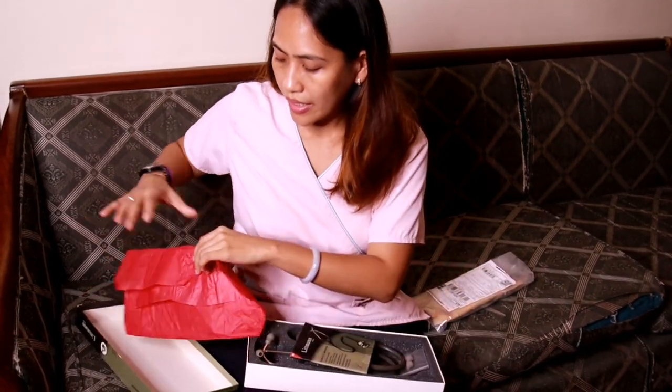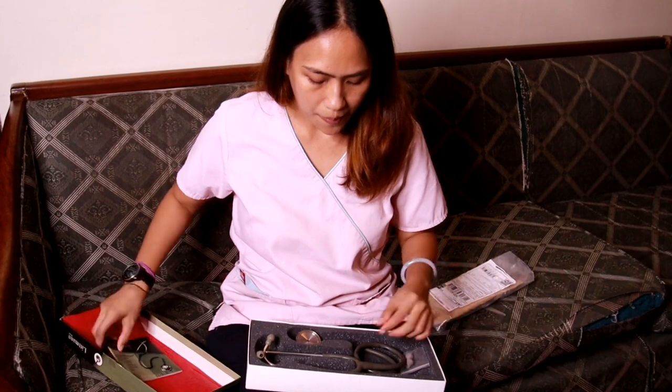This is different from the pediatric version because of course the pediatric one is smaller. I've had this stethoscope for over a decade now, and the wear and tear came from the ring, and then I lost the membrane, so I had to look for a good supplier for these two parts.